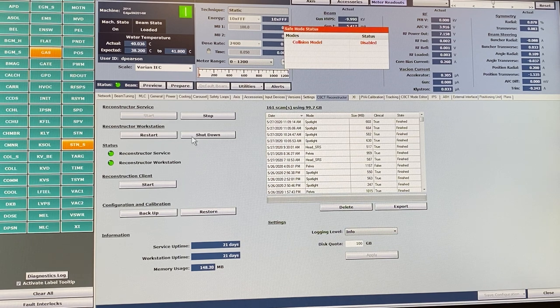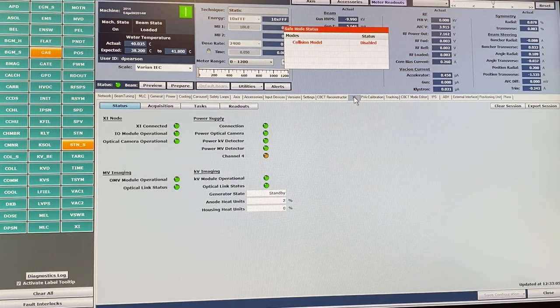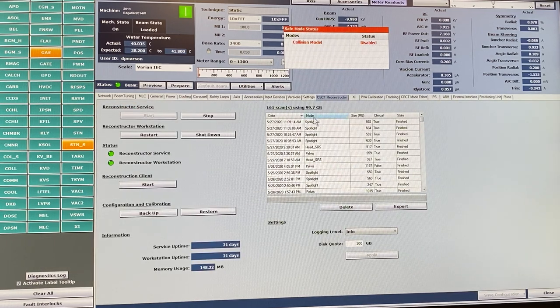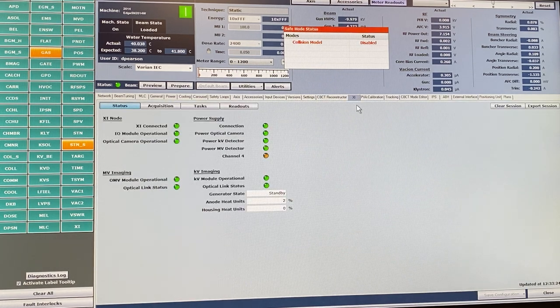The CBCT reconstructor sometimes needs to be restarted, and you can stop and restart it from here. If you have problems with the CBCT reconstructor or want to check disk space usage — we're currently using nearly 100 gigabytes out of a 100 gigabyte quota — that's shown here. We may need to get Varian to look at this soon and possibly create some backups.